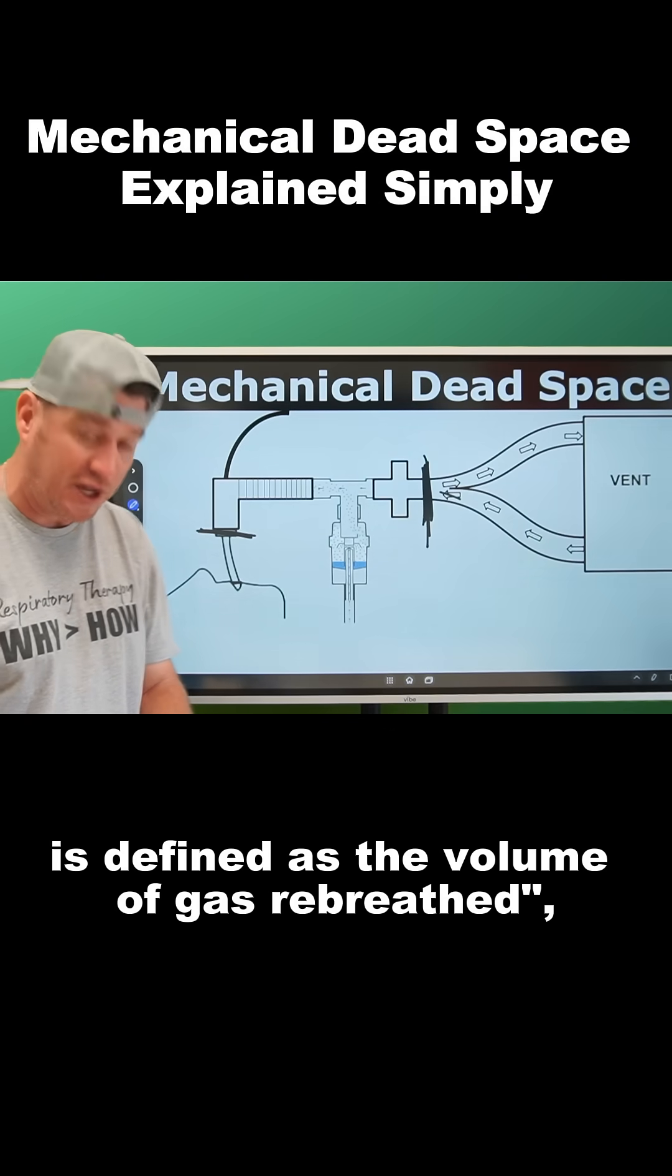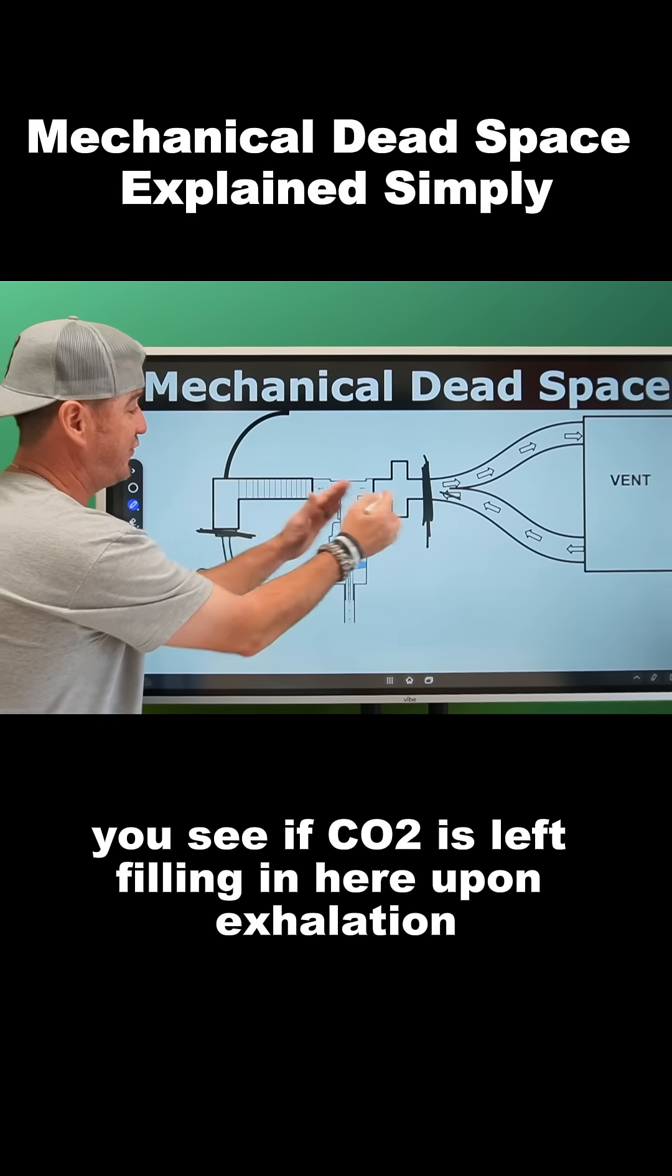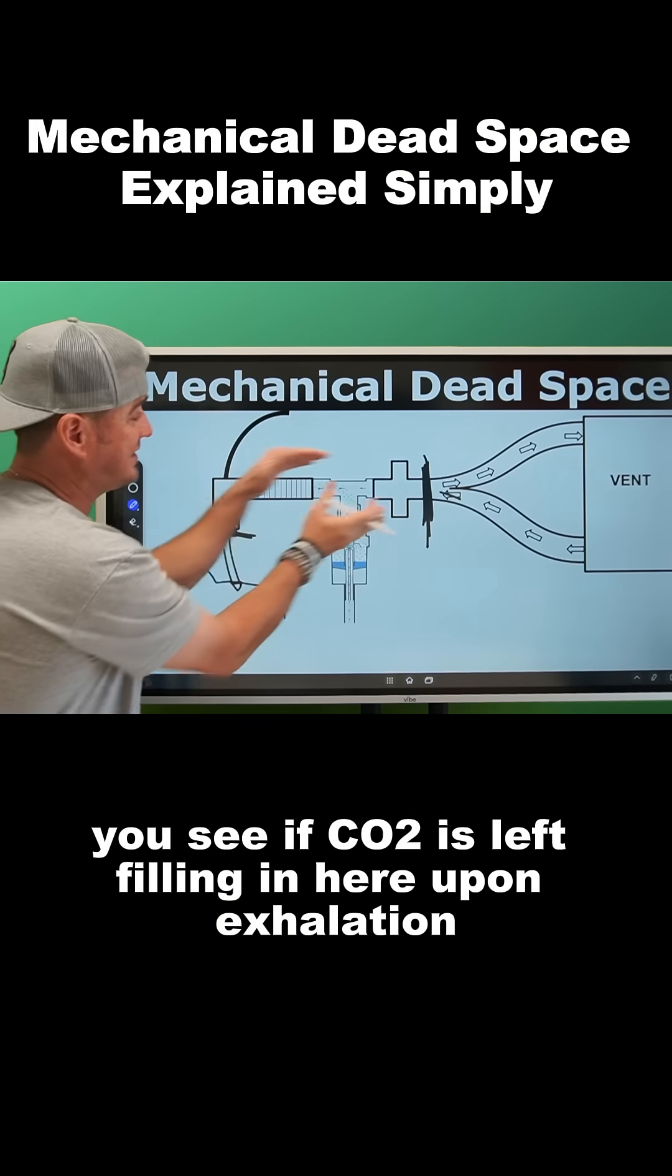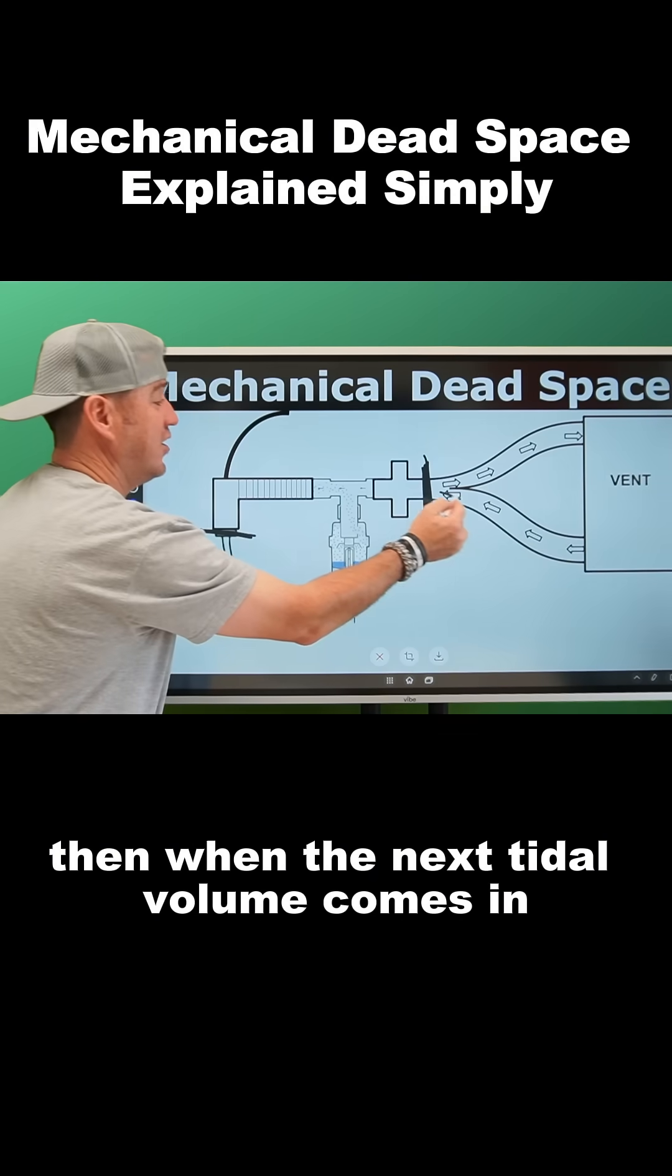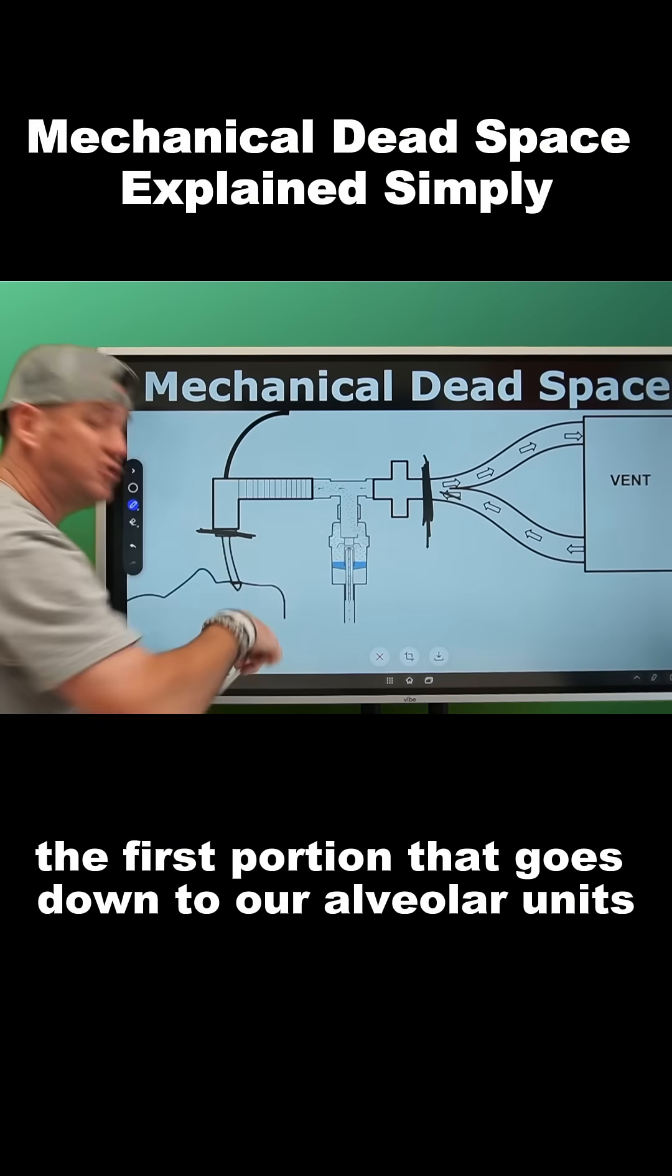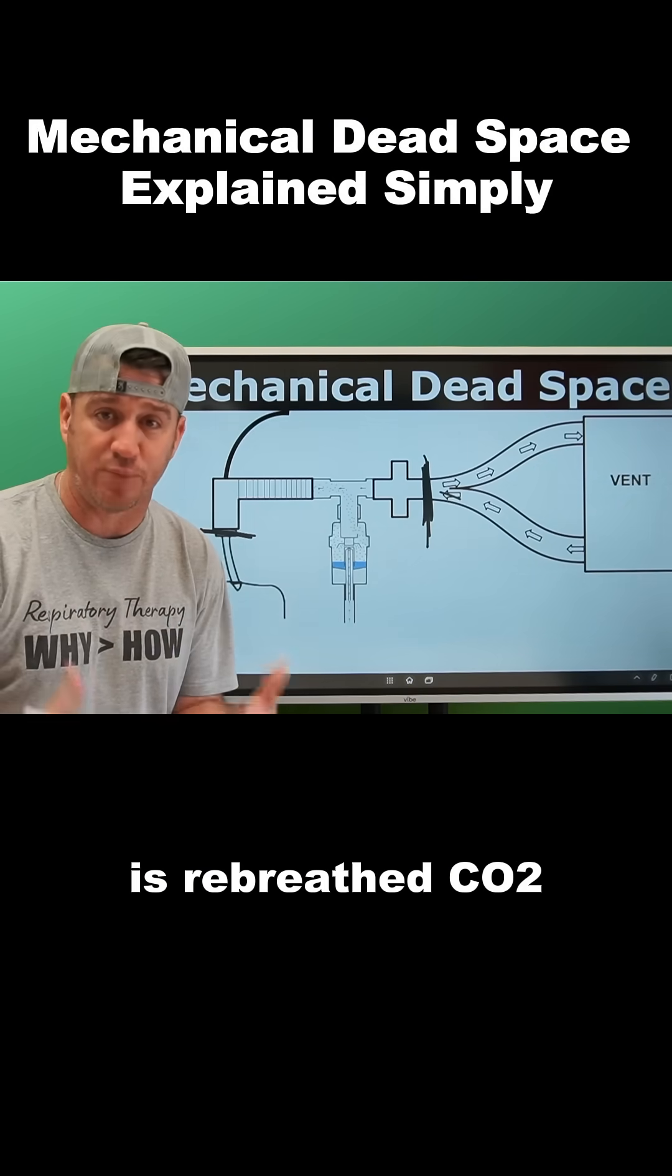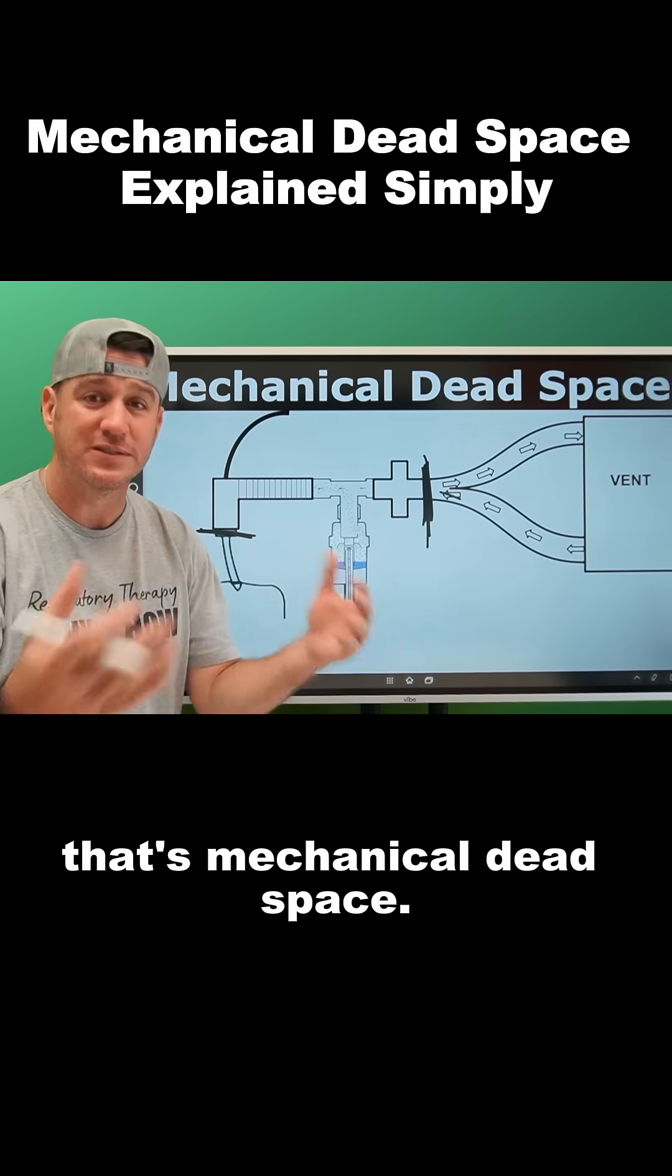You see, if CO2 is left filling in here upon exhalation, then when the next tidal volume comes in, the first portion that goes down to our alveolar units is rebreathed CO2. That's mechanical dead space.